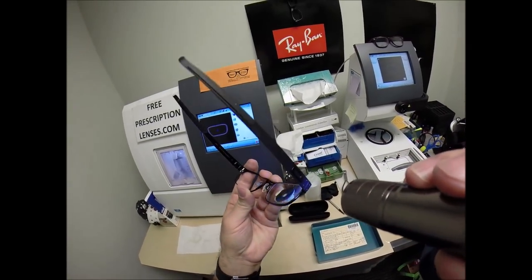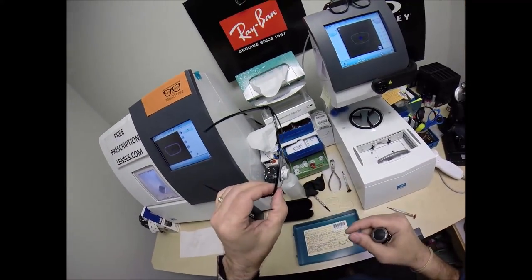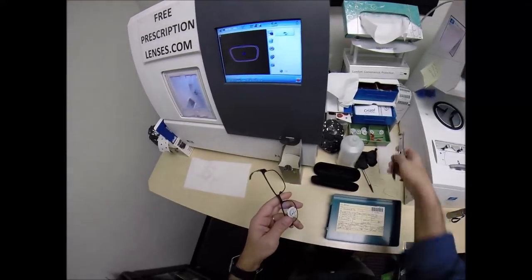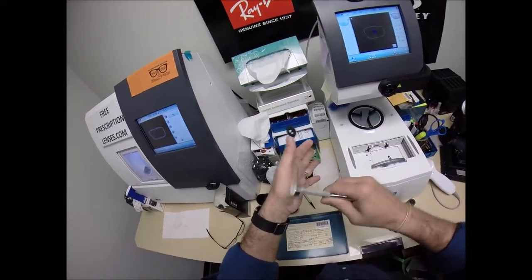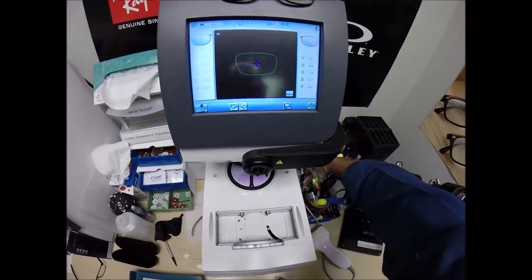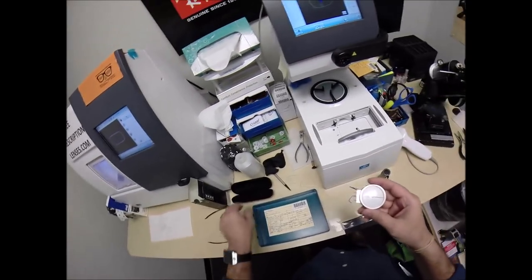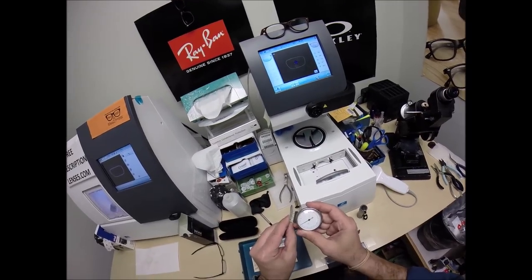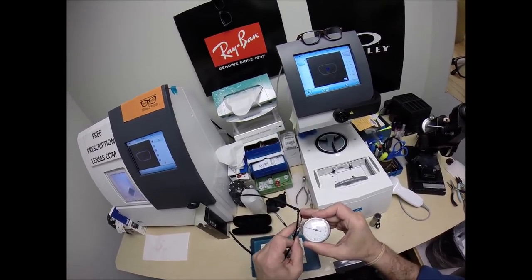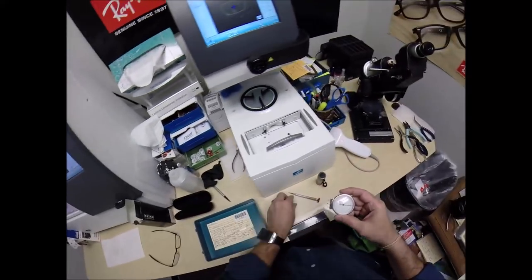Look at that, a plus lens in a metal frame. That's why I use the thinner, lighter weight lenses. Also, I did not order the lenses until this came in. I measured the base curve of the... Let's pop this off. Use my hand-approved drying method. Take that sticker, add it on there. But I used my Geneva lens clock. And I measured the base curve of these lenses. And I also measured the base curve of the frame by pressing that against the front and measuring. And I made sure to order the appropriate curvature of lens to match the frame.